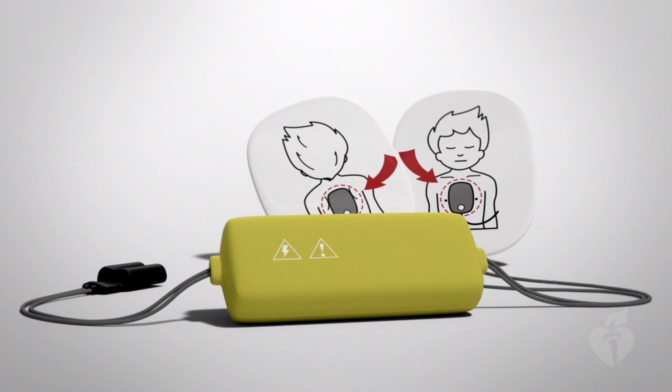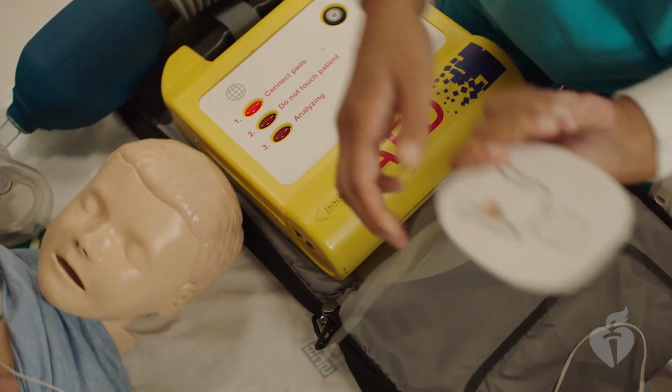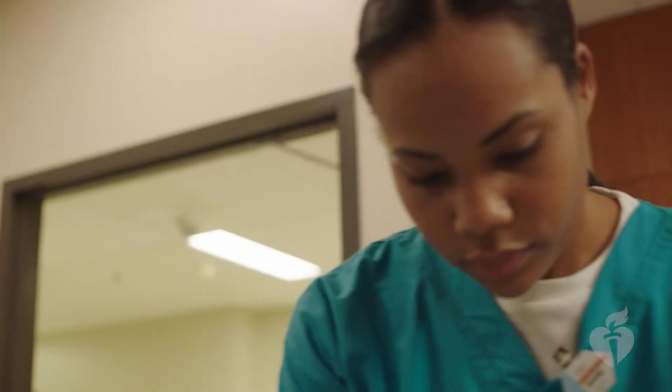If you are using a pediatric-capable AED, it will have features allowing a child-appropriate shock. But the type of feature available depends on the type of AED you're using. Your AED may include smaller size pads designed for children under 8 years of age. If it does, use them. If not, use the adult pads, making sure they don't touch or overlap.